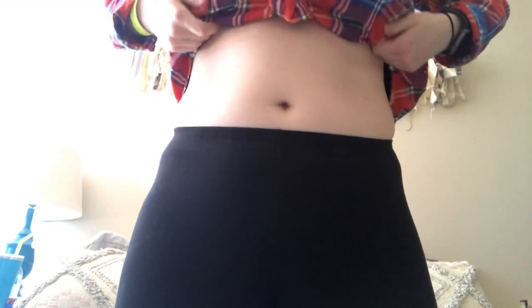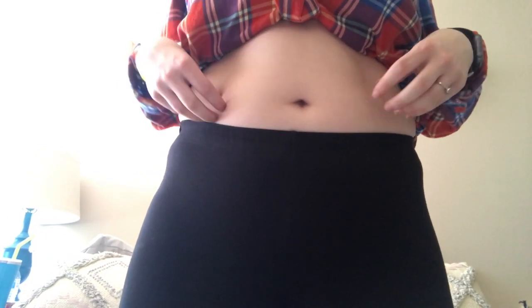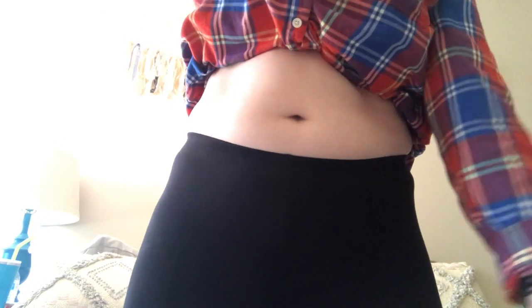I just took the other one out of this side of my tummy. In order to get evenly distributed insulin, avoid buildup, and prevent lumps forming, I'm going to put the next one on the other side. Here is an alcohol prep pad and I'm just going to rub it in a circle over where I think I might put it in, and then it's going to dry.